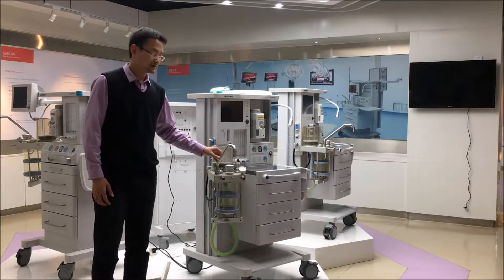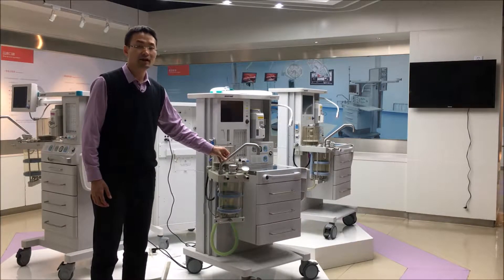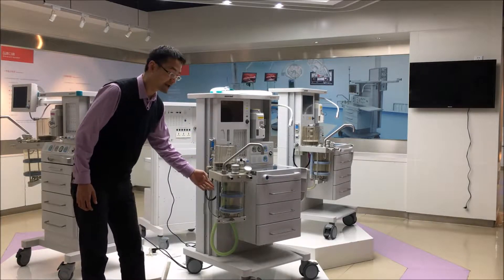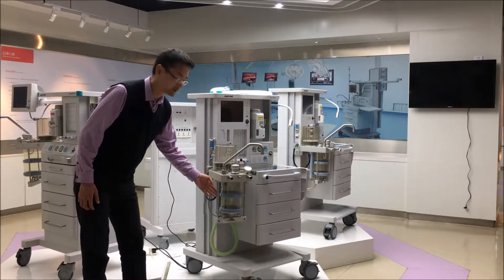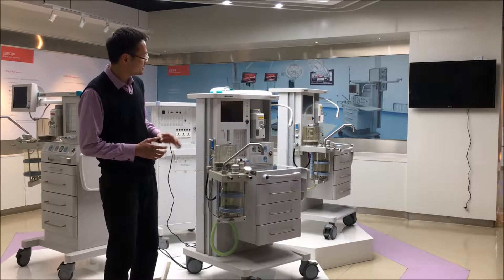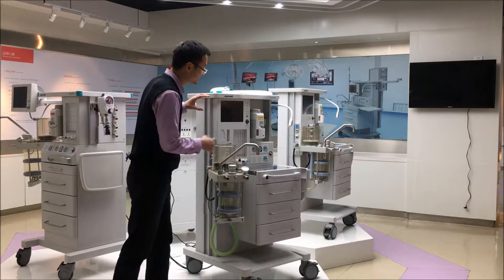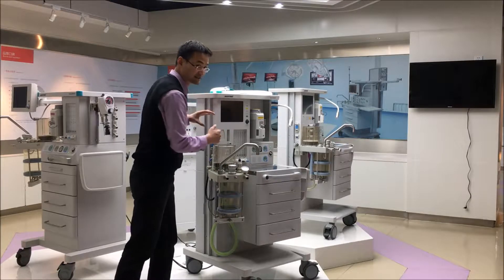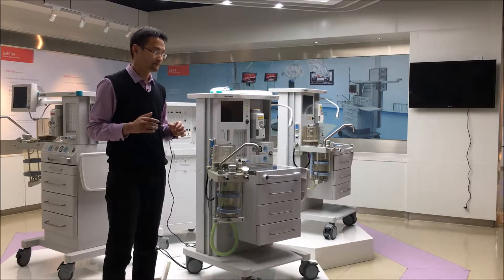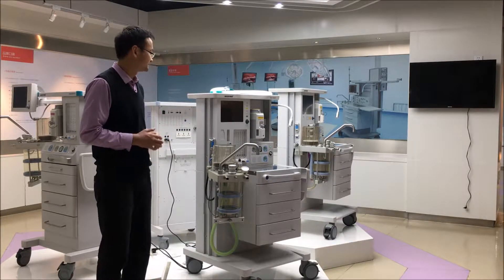Somebody calls it the breathing system. Some others call it the absorber, because it can absorb CO2. And some others call it a ventilator, because combined with the display system, it has a ventilator function. I prefer to call it the breathing system here.